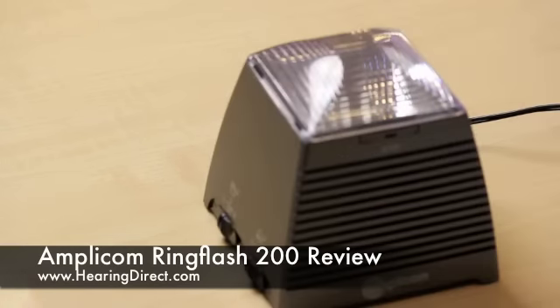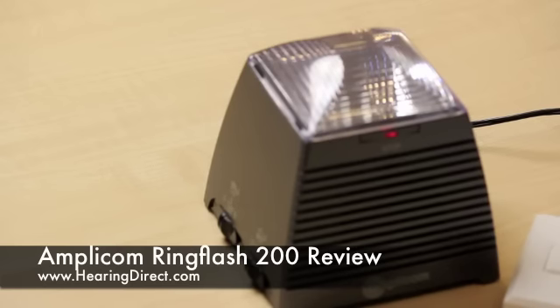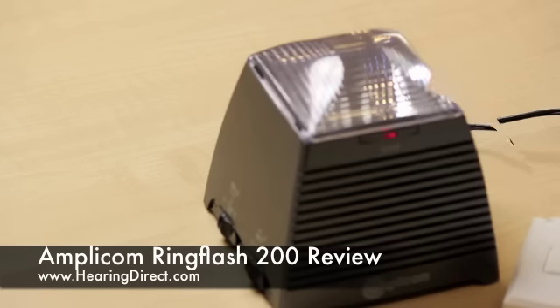Once you've got everything set up, in order to test the unit you simply press the doorbell and switch it off if you need to. The range of the wireless doorbell is said to be about 25 meters, although this does depend on how many structures are in the way, like walls, in your house between the doorbell and the unit.